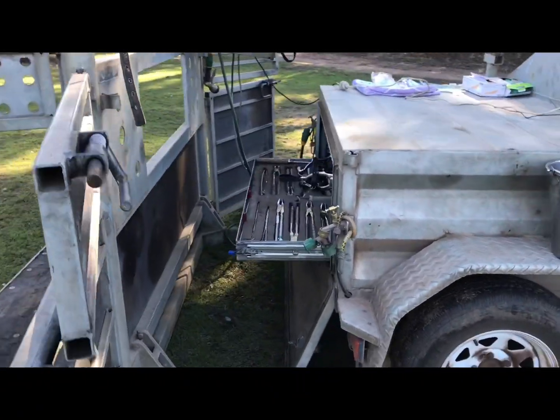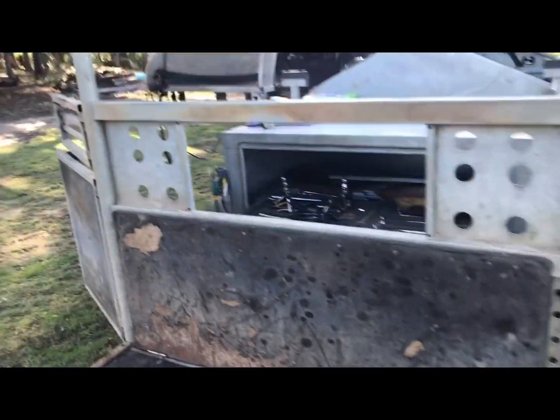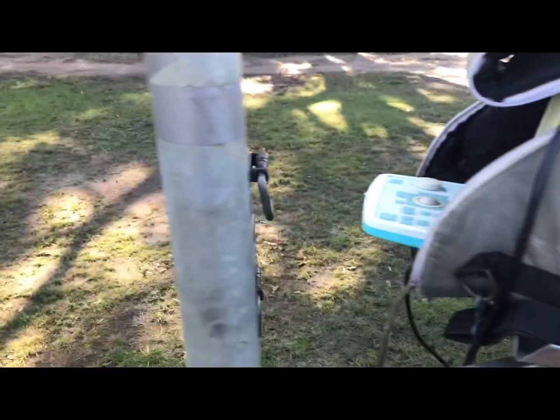Around here we've got taps at the back, extra storage space down there, we've got a walk-through crush with variable height chest bar to go in. Then we've got this ultrasound swing tray to hold the ultrasound machine, and we've got water here at the tail, ready to go.